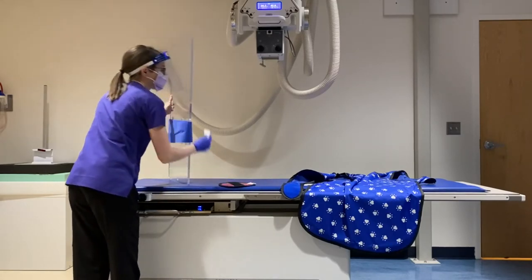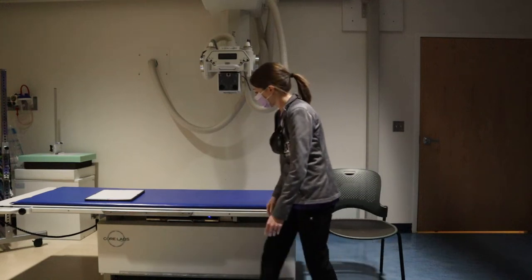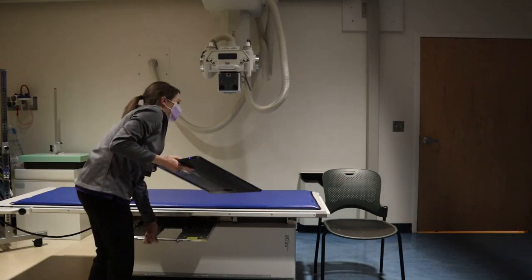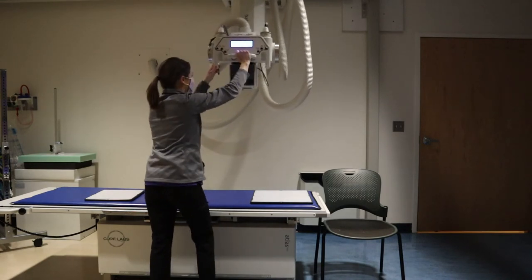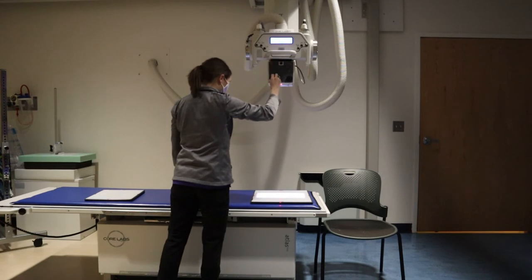That little shield was just a gonad shield. I don't actually have a patient at the moment, but I'm showing how to set up for an upper extremity exam. I would typically do this for the patient's right arm, right hand, right wrist, right elbow. And it's pretty simple.